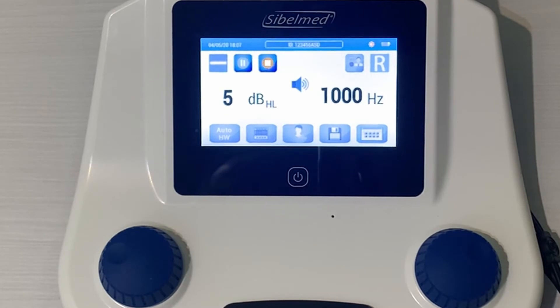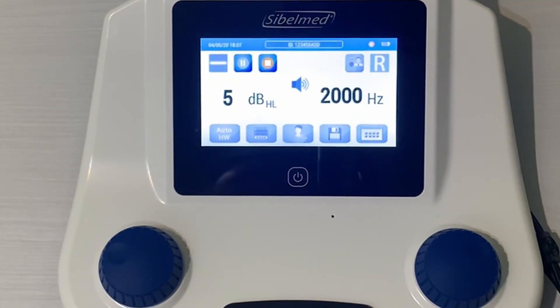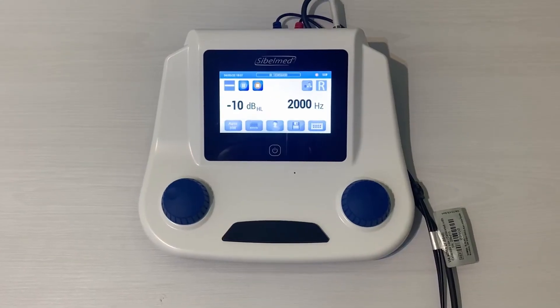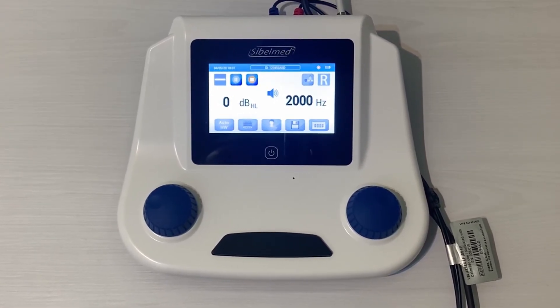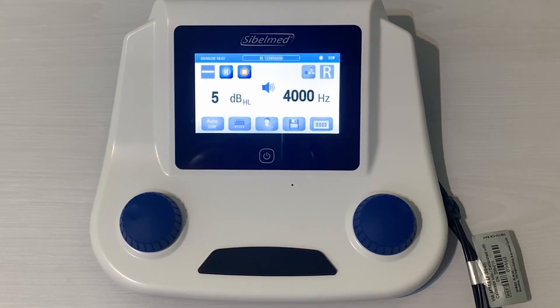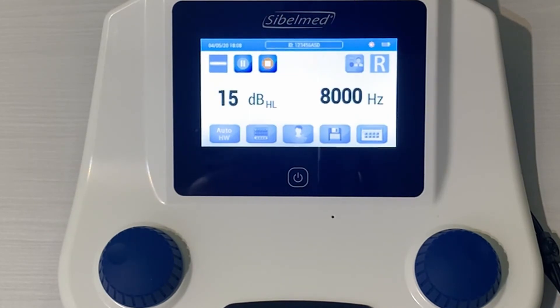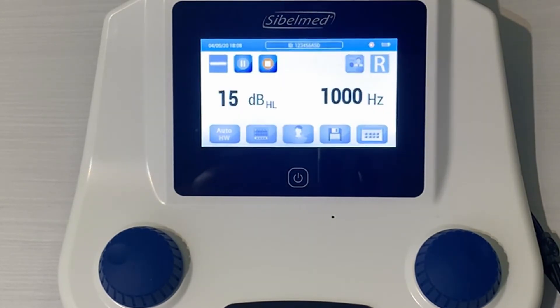At any point, press to pause the test. The second icon will allow us to see the results. Click on the pause icon to resume. After determining the frequency threshold, the intensity and frequency values turn green for a second and the threshold is stored. The audiometer will move automatically to the next frequency as per the HW configuration setup. The first tone level applied at each frequency will be the same as for the 1000 Hz frequency. After the high frequencies have been examined, the audiometer examines the 1000 Hz frequency again to check the consistency of the results.